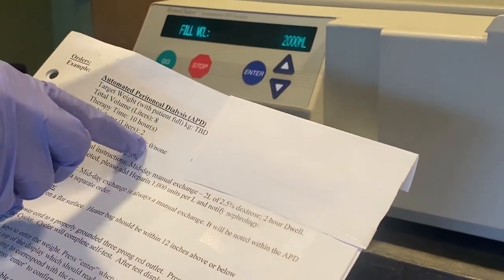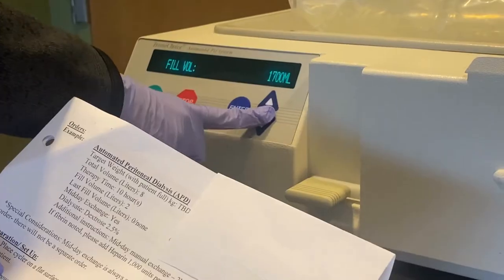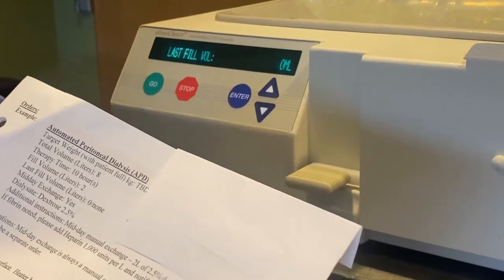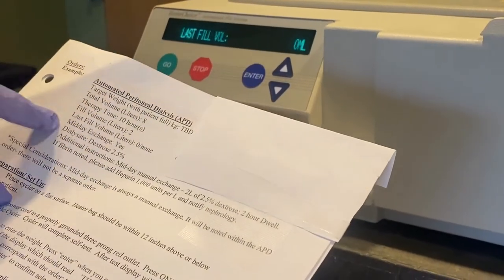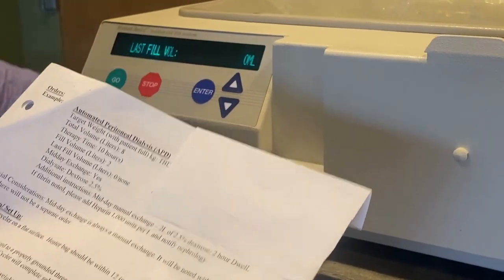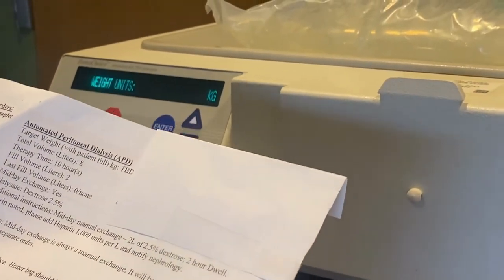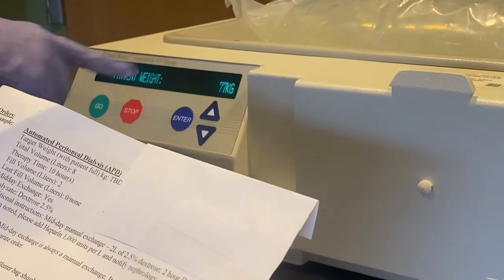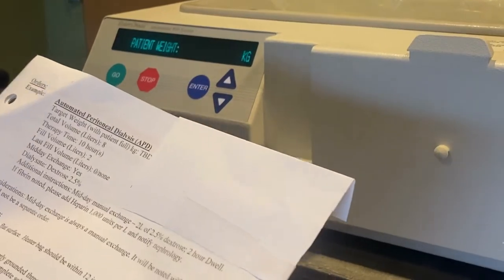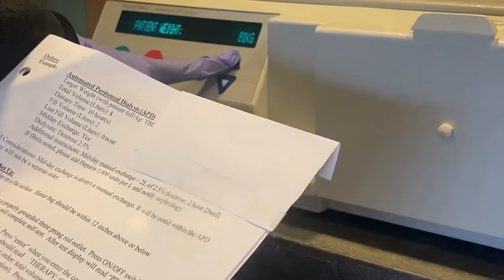The fill volume is two liters — again this is accurate. If we needed to change this, we would click enter and use the down and up arrows. Last fill volume in this case is zero — same thing applies. The last setting will ask for your weight; it first asks if you want it in pounds or kilograms. We want it in kilograms. Go down once more to get to the actual weight portion.